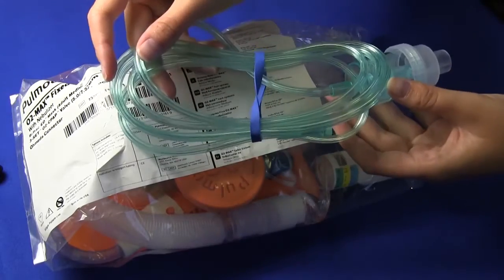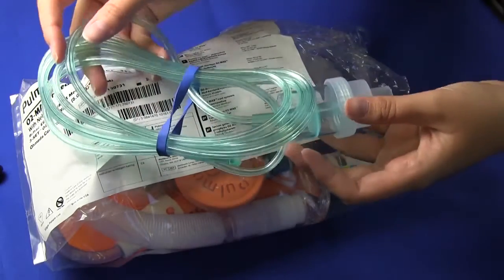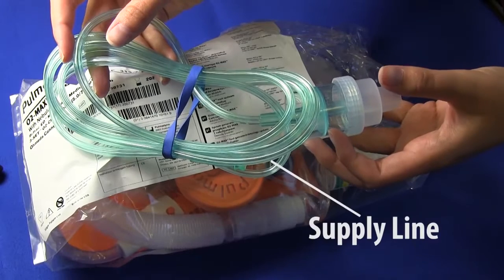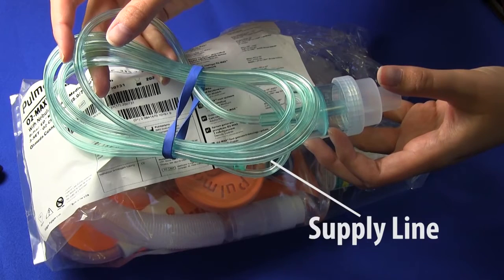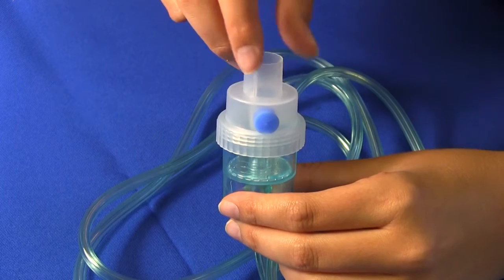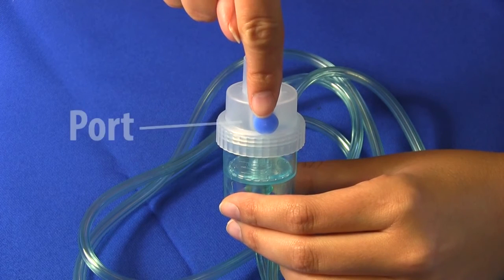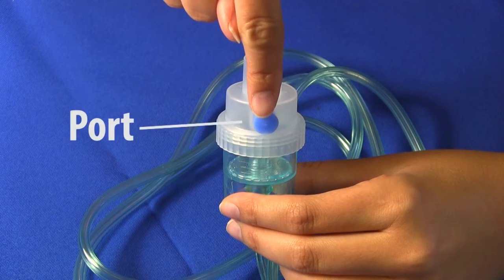You'll see that the nebulizer canister includes a supply line. The nebulizer canister also includes a small port on the side for needleless access.